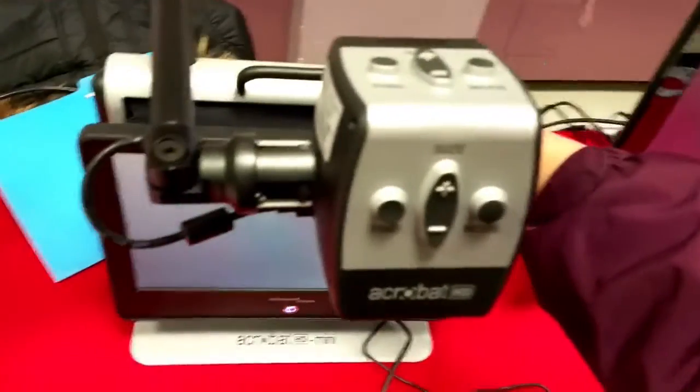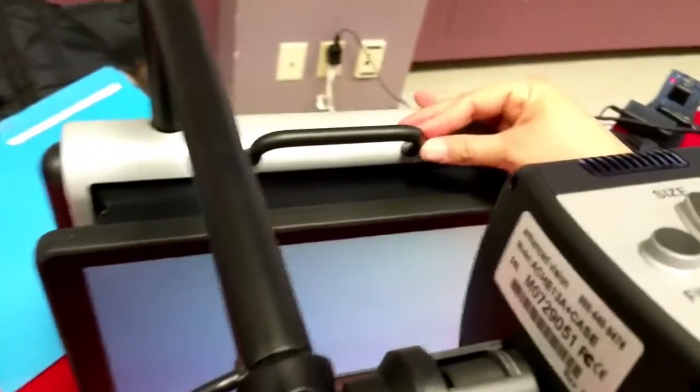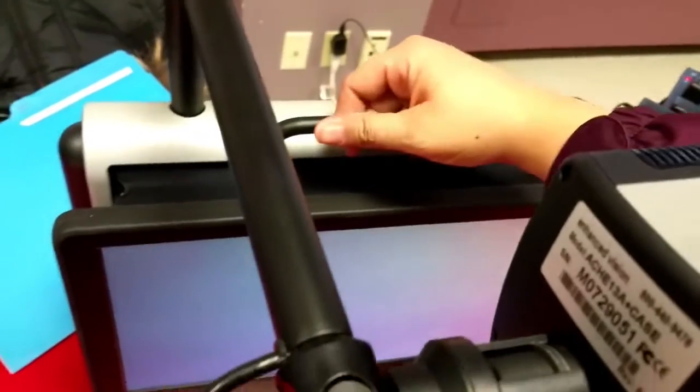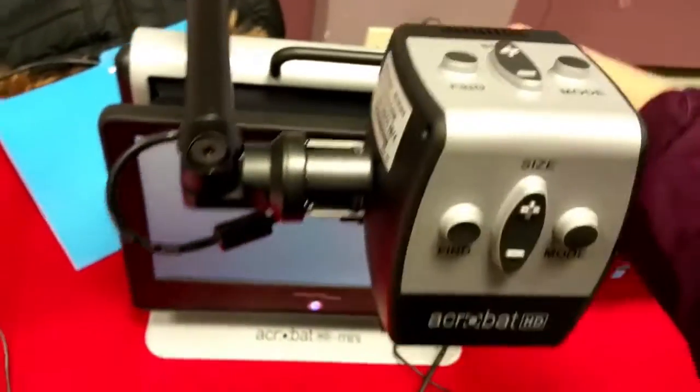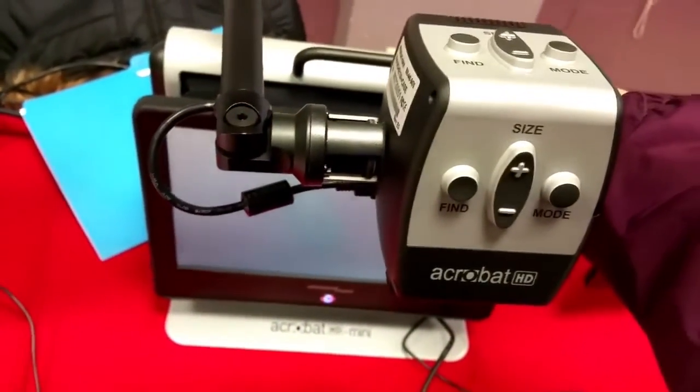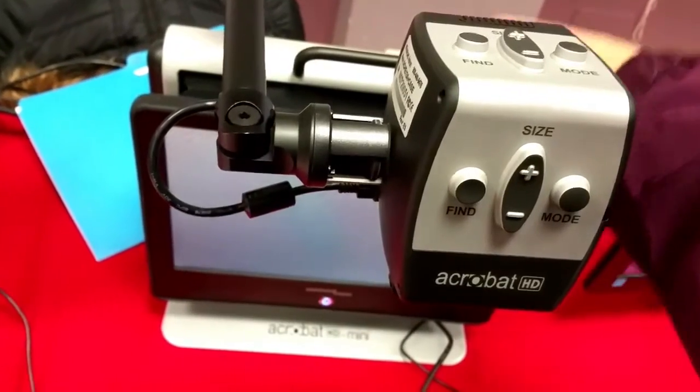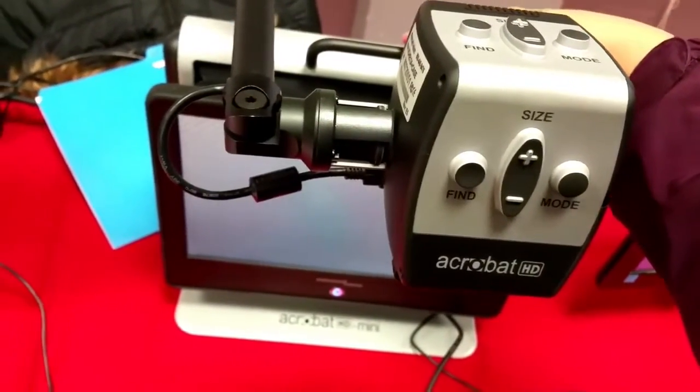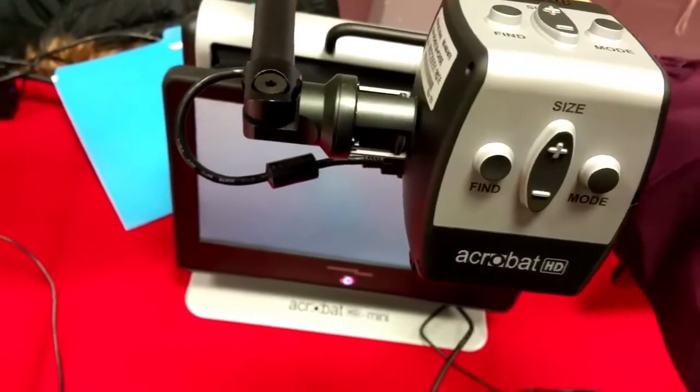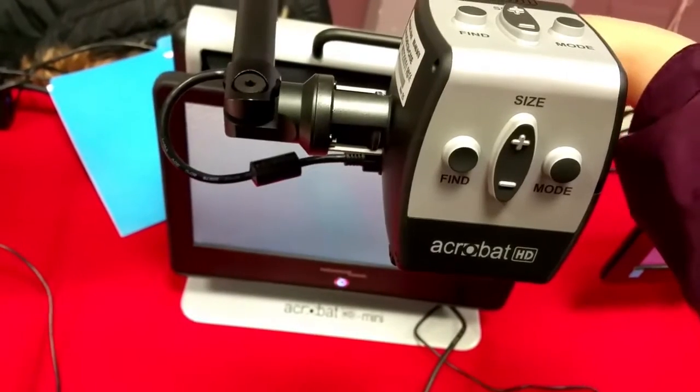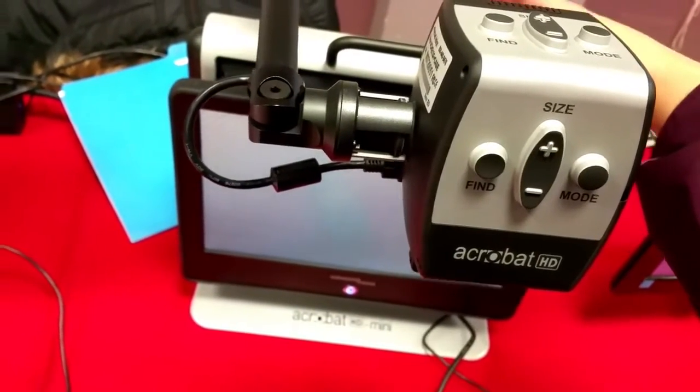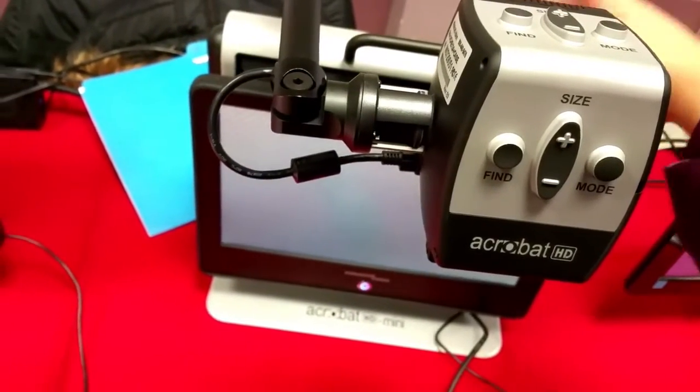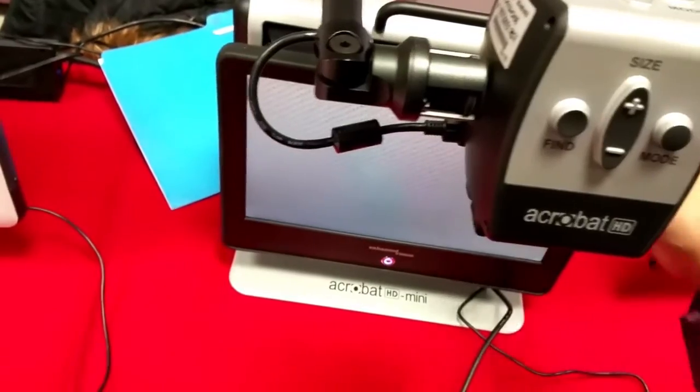Yes, the great thing about this one is it's actually portable. On the back here there's actually a handle. Now this is quite heavy for a weakling like myself, but you can pick this up and lift it up. It comes with a carrying case so you can pick it up and take it with you on the go. It actually fits inside a white carrying case so you can even take it on a trip with you.